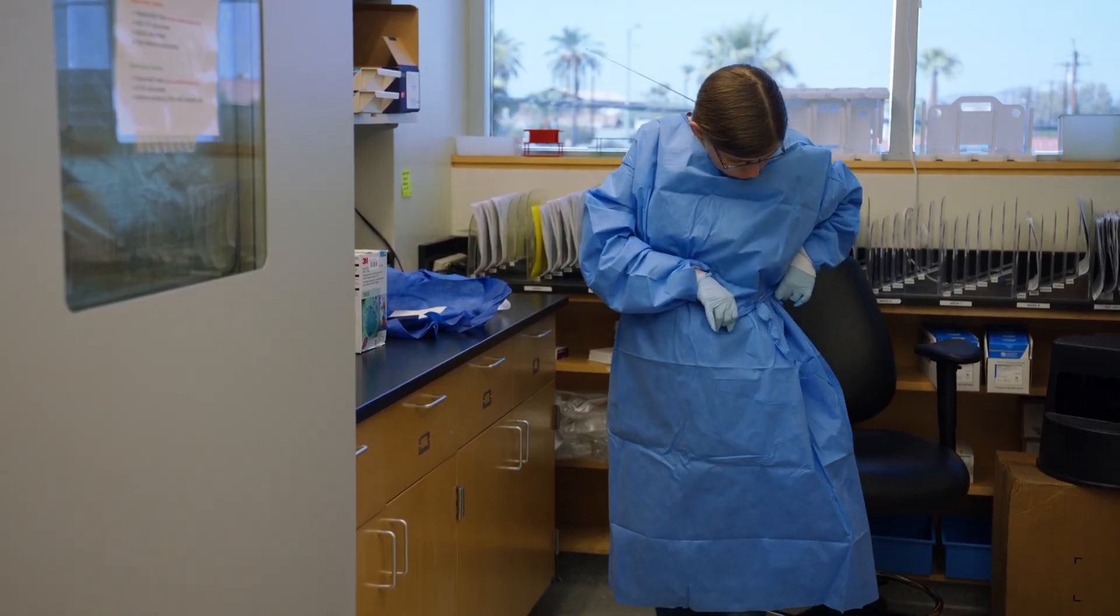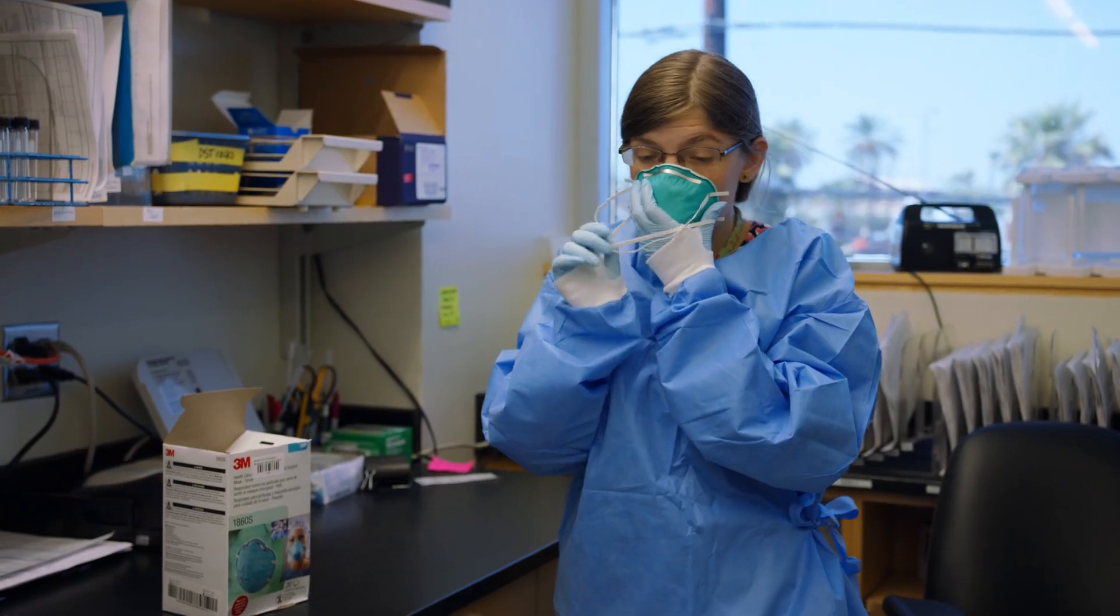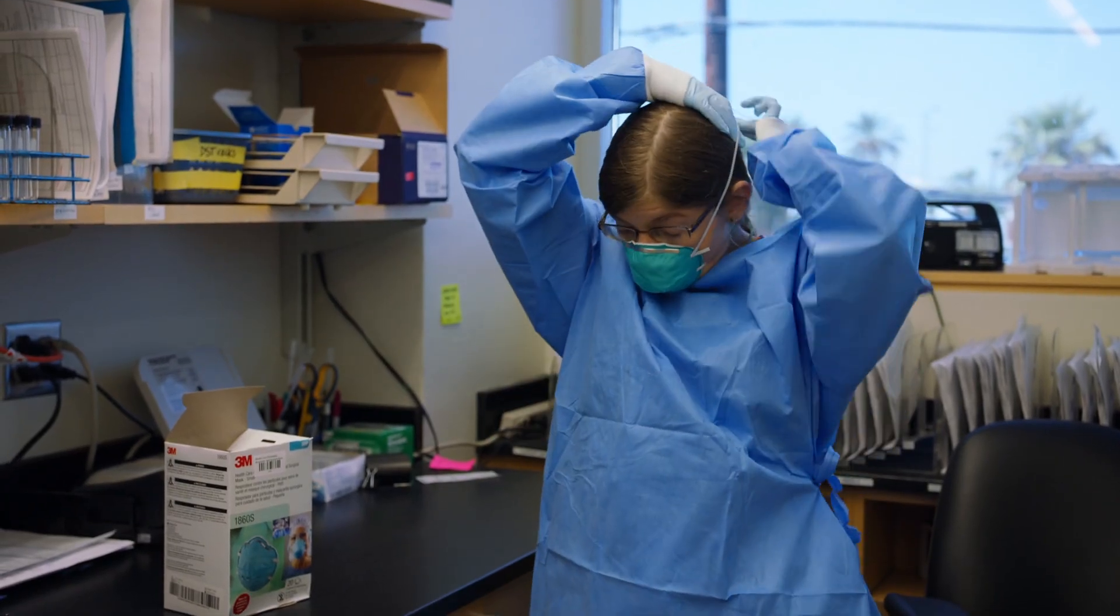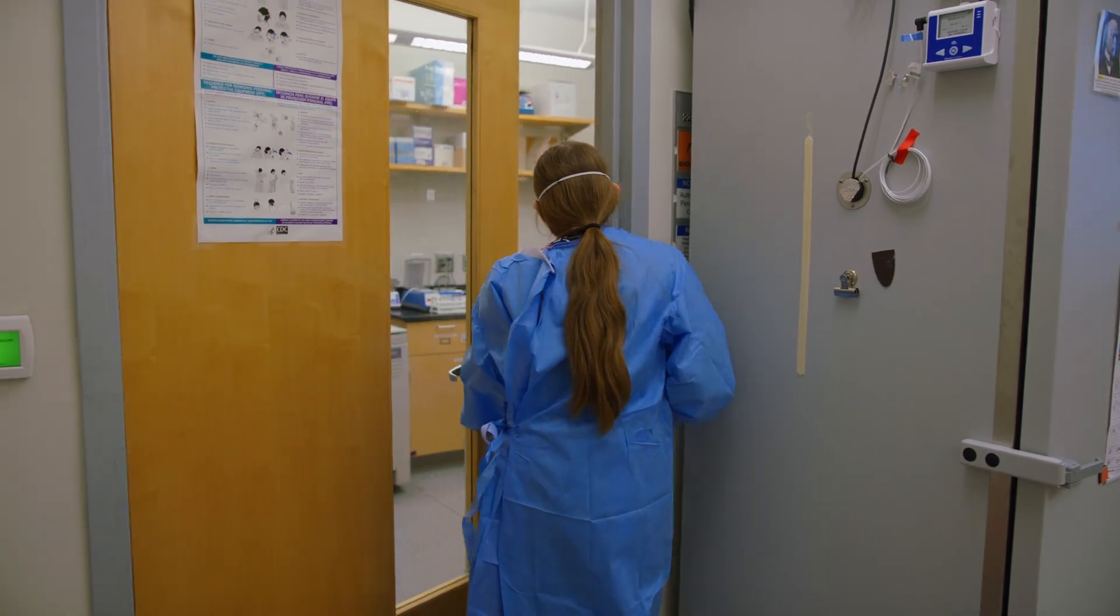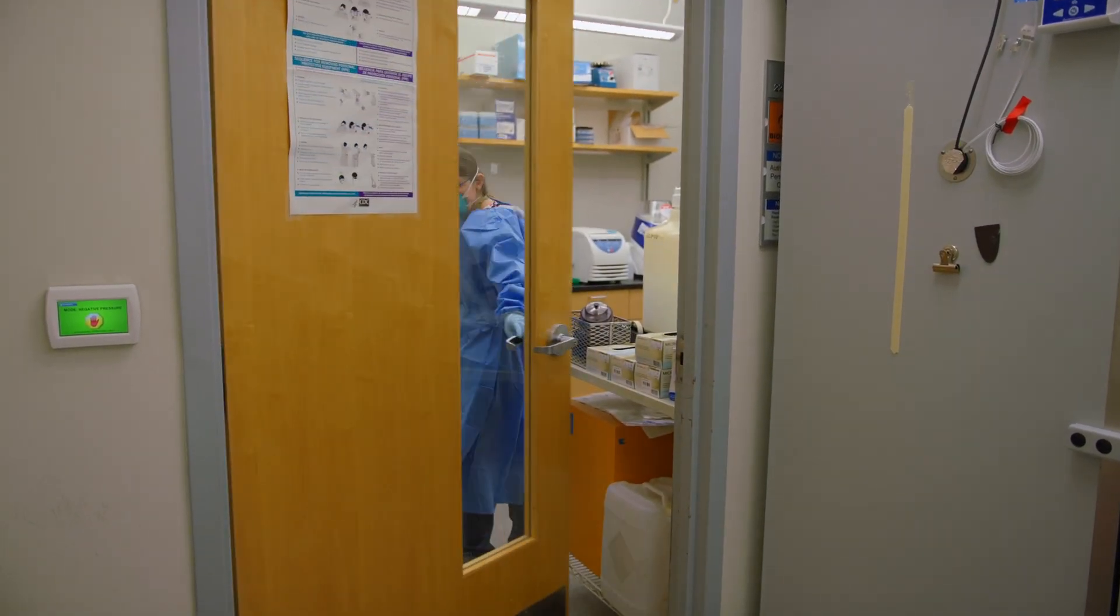Biosafety Level 3. Rigid adherence to protocol keeps our scientists safe from exposure to this virulent contagion, as do the extraordinary fail-safes built into the very bones of the laboratory.